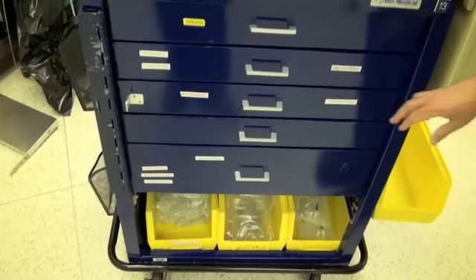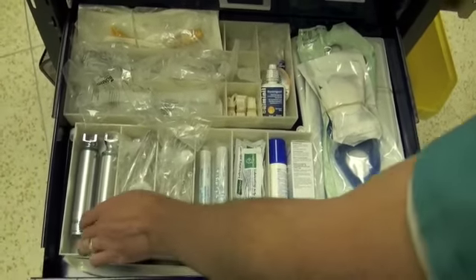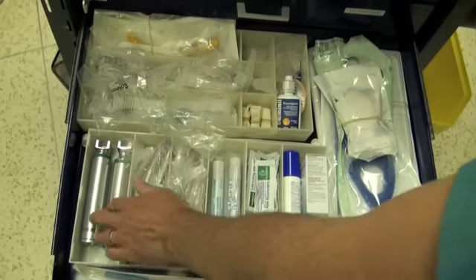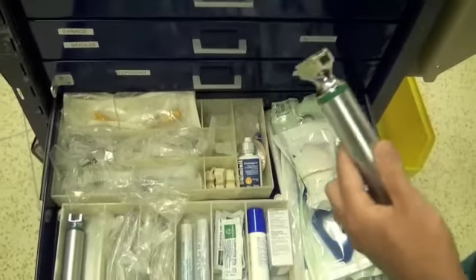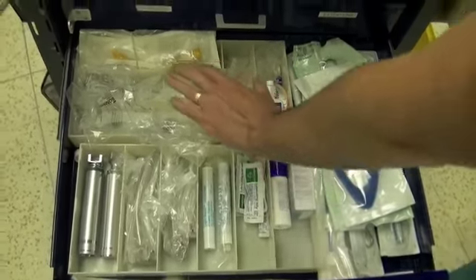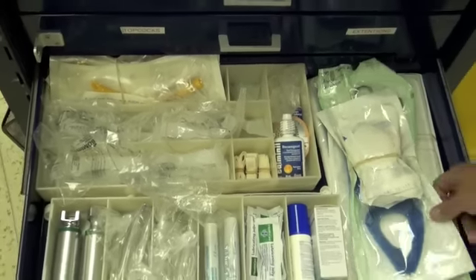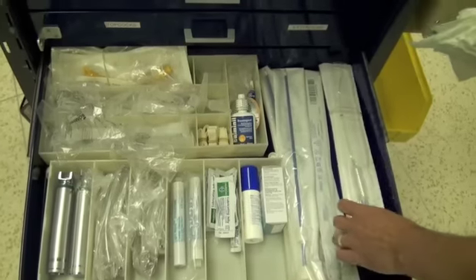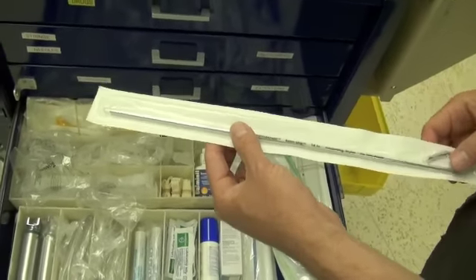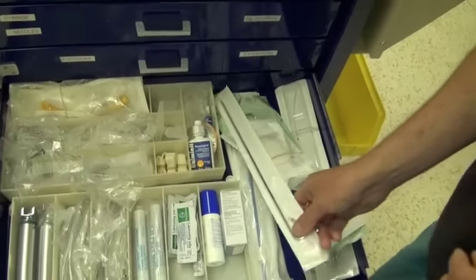The next drawer down is a very important one — our airway equipment drawer. Everything you want for airway equipment is going to be found here. This includes laryngoscopes off to the left; in this instance we have MAC 3 blades, two MAC 4 blades, and two laryngoscope handles. When you come in in the morning you may want to check your handles and make sure they actually work by putting one of the blades onto the handle. We have oropharyngeal airways and nasopharyngeal airways at the back, eye padding, Lidojet sprays that put lidocaine down the trachea, and a stylet — used to get an endotracheal tube into a hockey stick position for instances where during laryngoscopy we are unable to get the tube around the corner under the epiglottis and into the trachea.